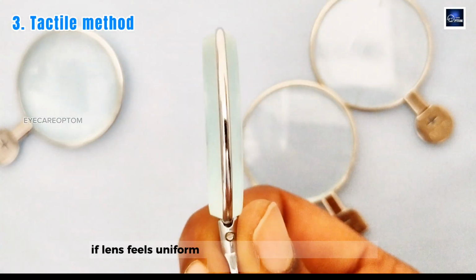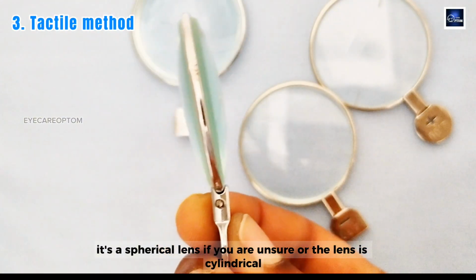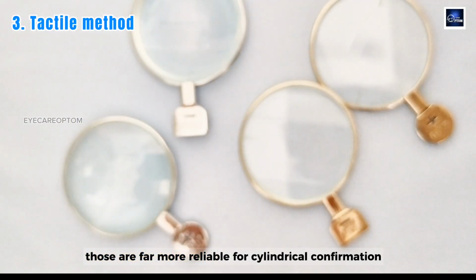If the lens feels uniform in thickness change from every direction, it's a spherical lens. If you are unsure or the lens is cylindrical, always go back to the crossline test or a movement method. Those are far more reliable for cylindrical confirmation.